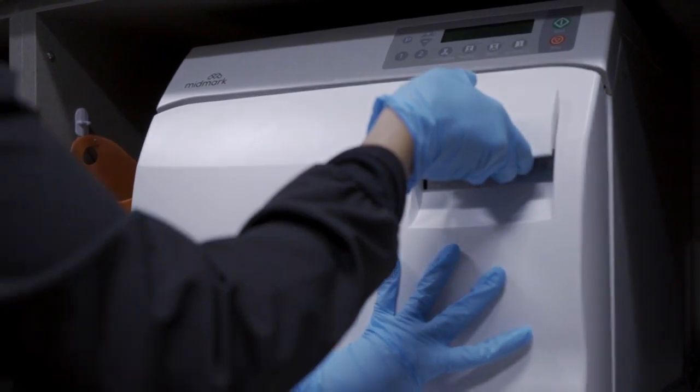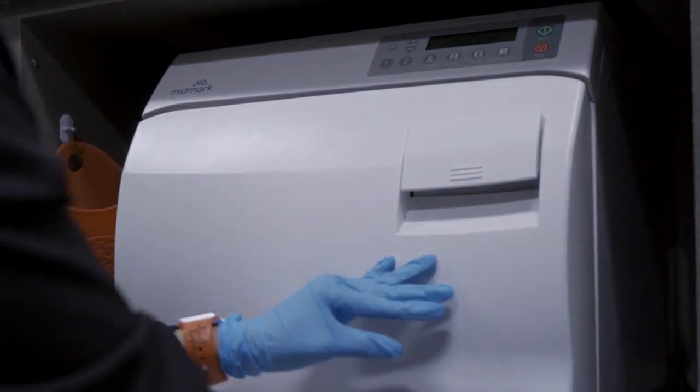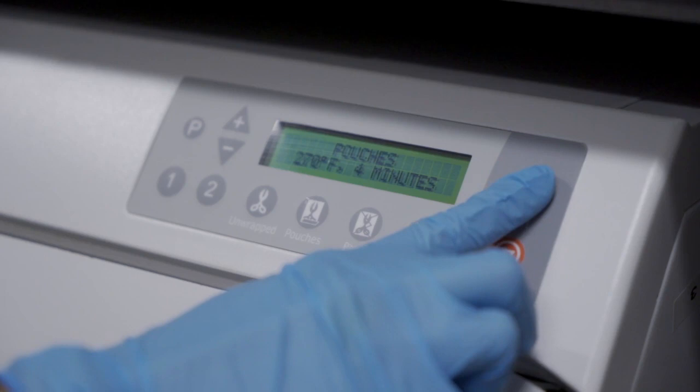Once it's closed, look across the top and press the button that says 'pouches,' then press start. The autoclave will start to heat up and begin the processing.